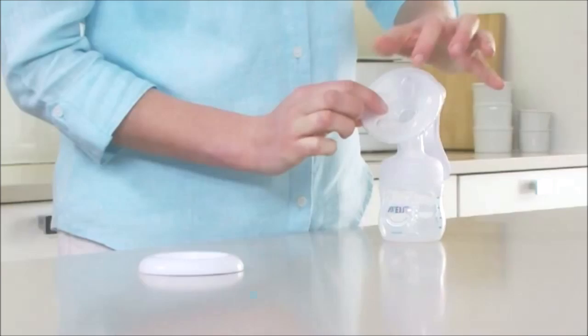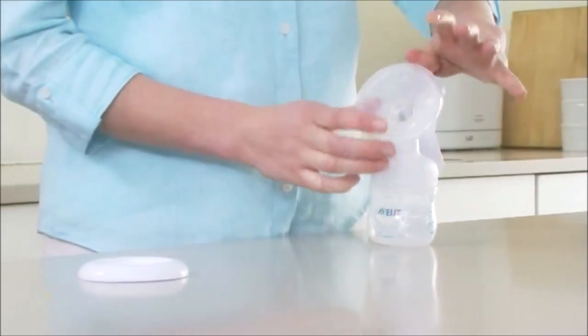Then run your finger on the flat surfaces between the petals to make sure there is no trapped air behind the cushion.